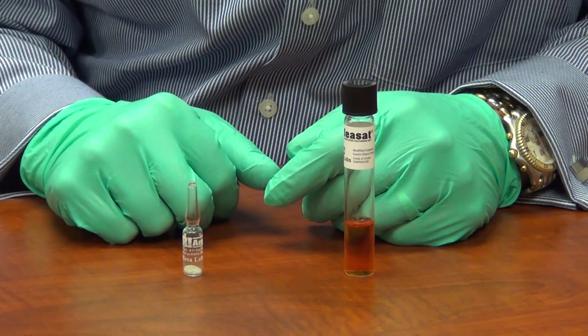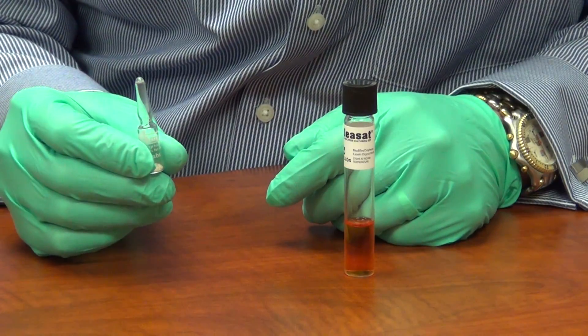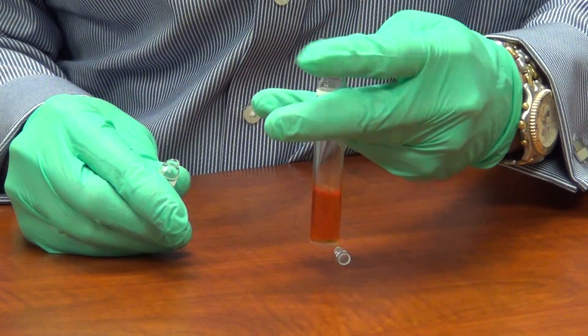The exposed Dry Amp Indicator will be cultured by your trained microbiologist either in a laminar flow bench or a biosafety cabinet. We will show you the process here so you can see what it looks like. We culture the spores from the Dry Amp by snapping the lid on the biological indicator and then aseptically pouring the contents of the Dry Amp into the tube of culture media.